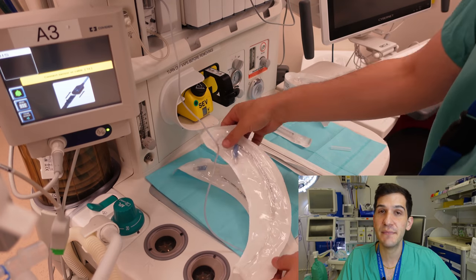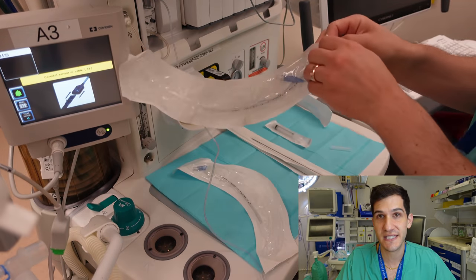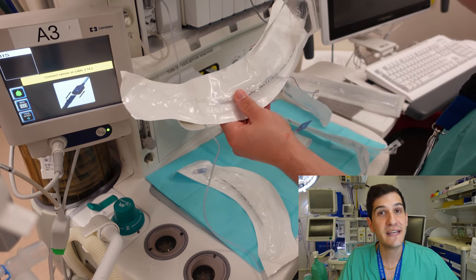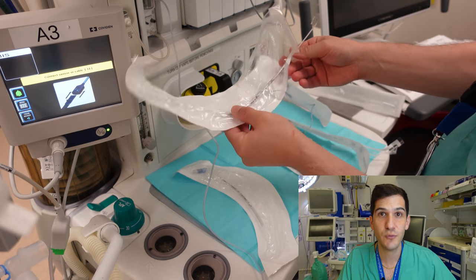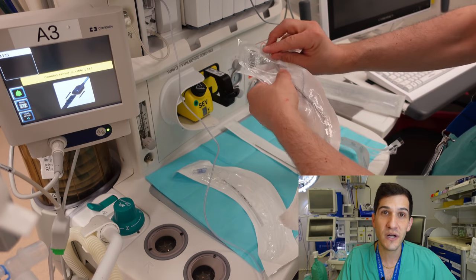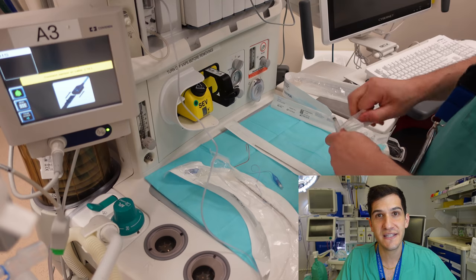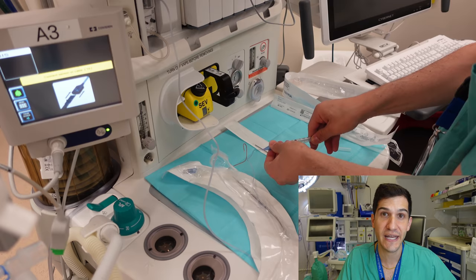The A in the mnemonic stands for airway. I'll start by making sure I've got several different endotracheal tubes that I think will work for this patient, but since I'm not exactly sure what the best size will be, I want a backup option in a different size. I'm going to put what's called a stylet inside the endotracheal tube — that gives it a little rigidity so as I'm intubating I can navigate the tube through the vocal cords, and once it's in place I'll remove the stylet. I also test the cuff to make sure it has no punctures and will stay inflated.